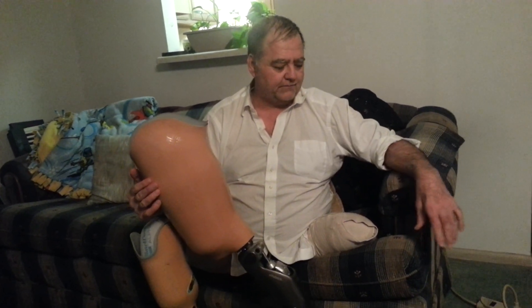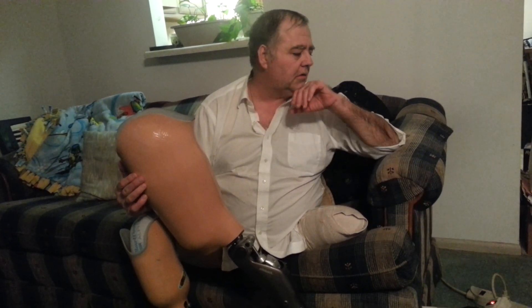The last thing about charging and setting up this leg, and the one I found most difficult, is finding a convenient place to plug it in where it's also out of the way. I want to be able to plug it in, take it off, and put it on where I can reach it, but at the same time have it out of everybody else's way. That's been the hardest thing about this whole process. Hopefully that information is helpful to you for charging the C-Leg 4.